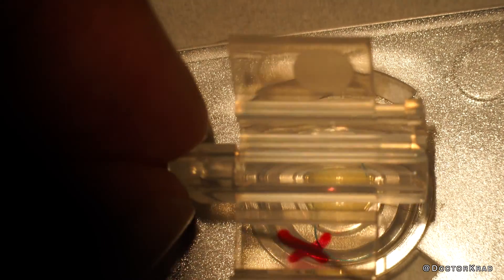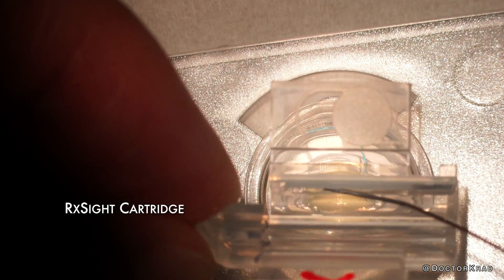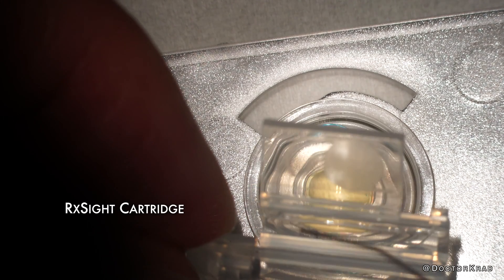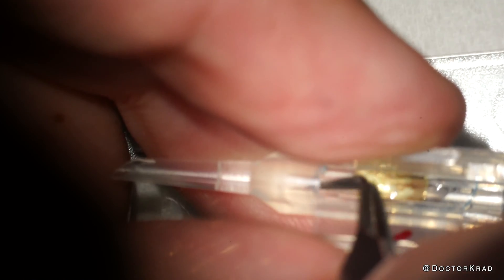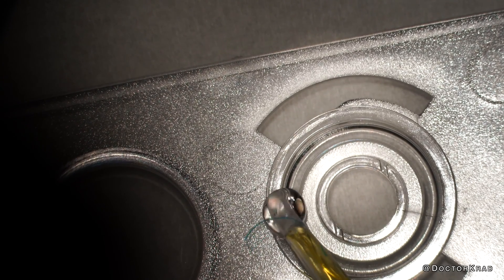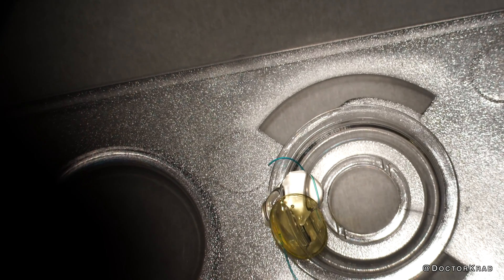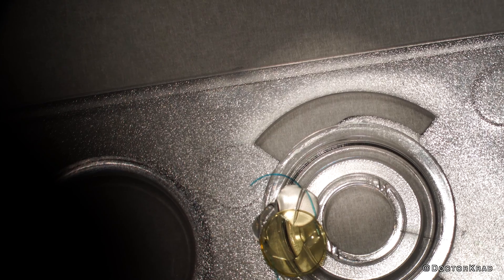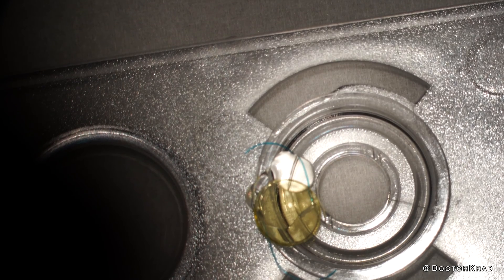But there's one way we can test it in the lab before testing it on a patient: use these same sample lenses with no UV protection and put them through the original RxSight injector to see if the lens implant survives the injection. We're gonna load the light adjustable lens in the RxSight injector — is it gonna rip in half? And it makes it out perfectly. The RxSight injector is a little bit bigger and provides more space for the LAL to fit through it.